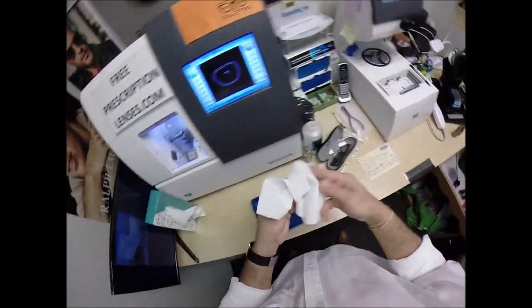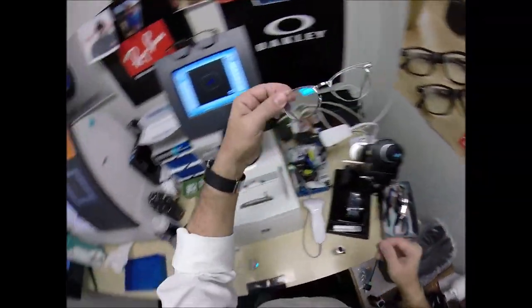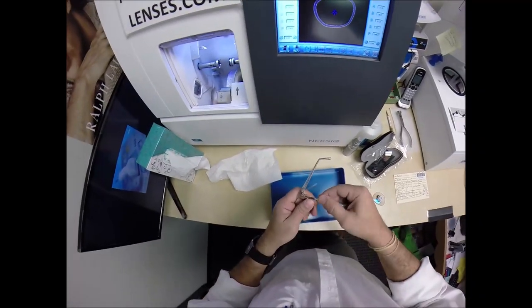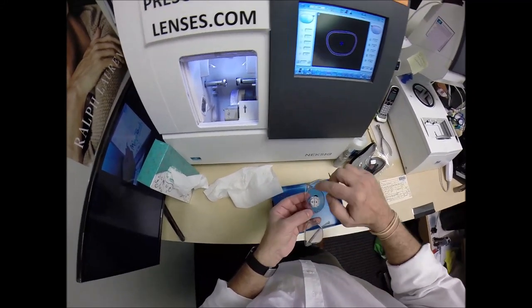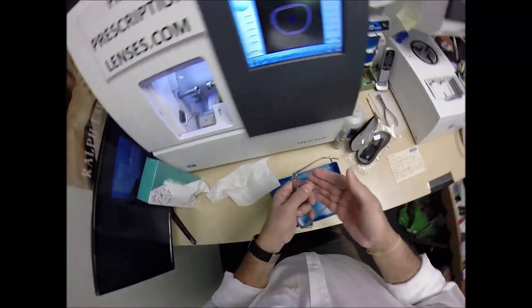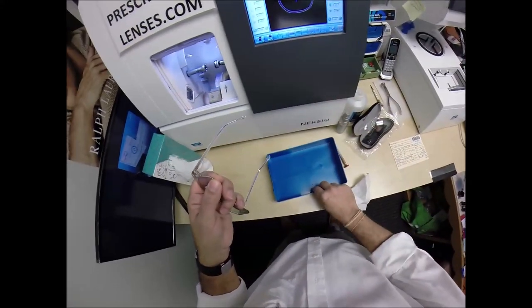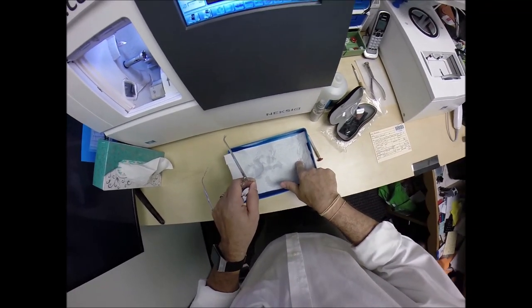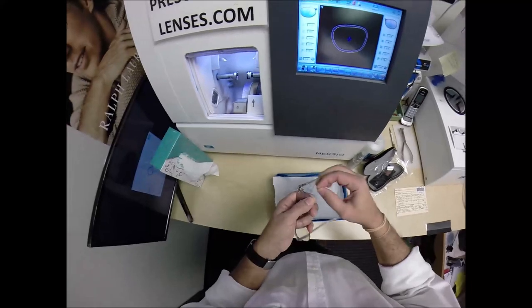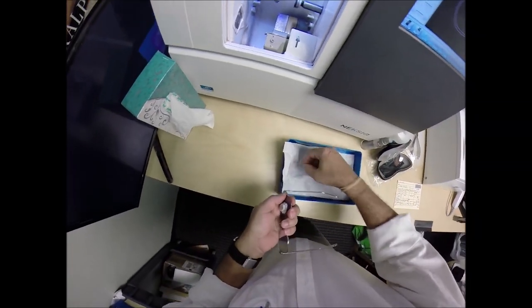Let's go ahead and take this left lens out. I'm just happy that after I touch this lens, the next face it's going to sit on is going to be in Africa — how cool is that? I love making glasses. Now, years from now, anyone who has a metal frame like this where you have to undo the screw — take a baking dish or metal pan with a soft t-shirt or dish towel. Put it in the pan, and if the screw comes out it'll land on something soft. If it hits something hard, it will bounce onto the floor — good luck finding one of these things.